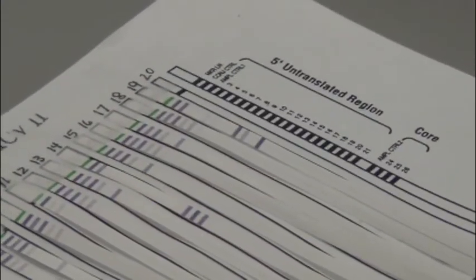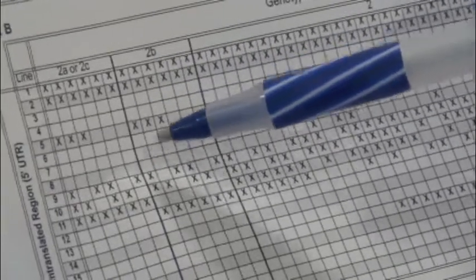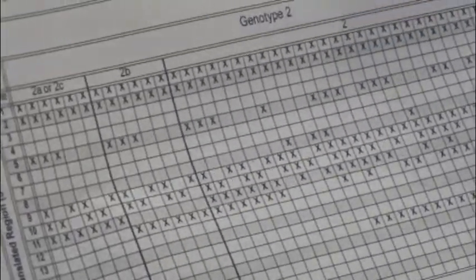What genotype is your control? The positive control is a 2. If you look at it here, and when you get down to those lower bands, it's easier if you hold up the template here. It's 1, 2, 5, 9, 10, and 12. And if you look here, 1, 2, 5, let's see, we have 9, 10, and 12. 1, 2, 5, 9, 10, 12. That's a 2B. That's a previous positive patient, actually.